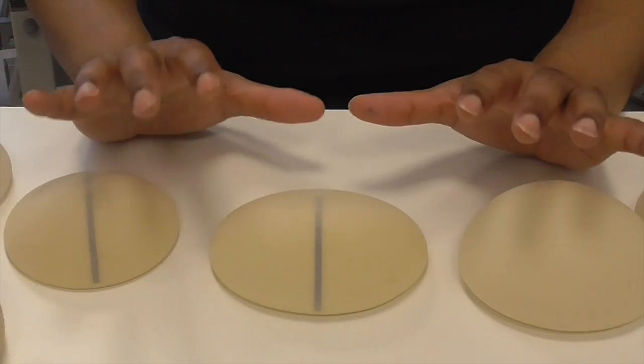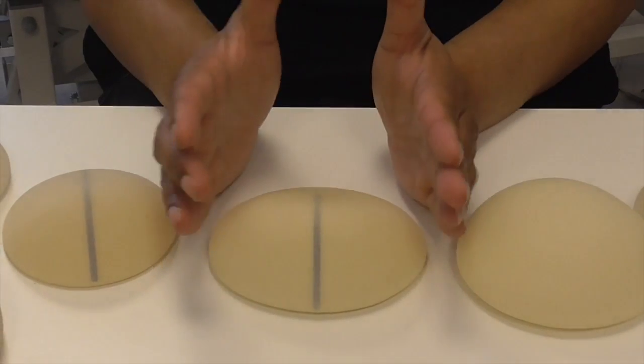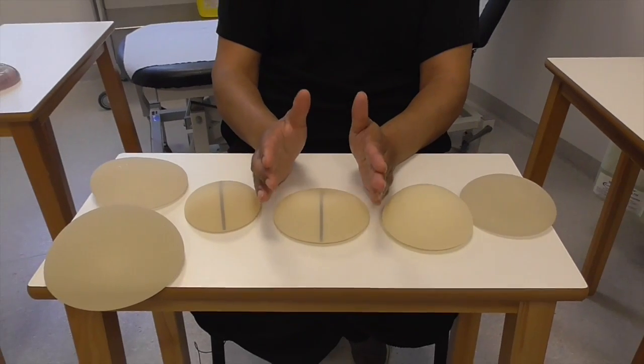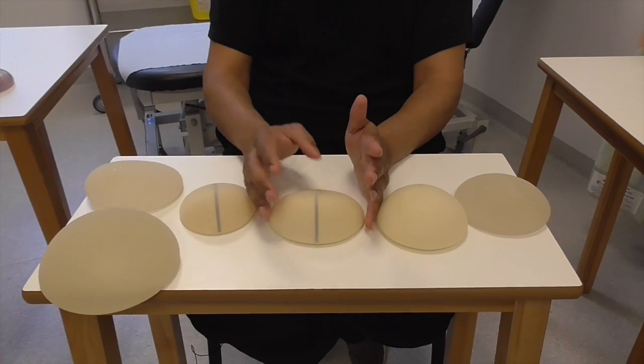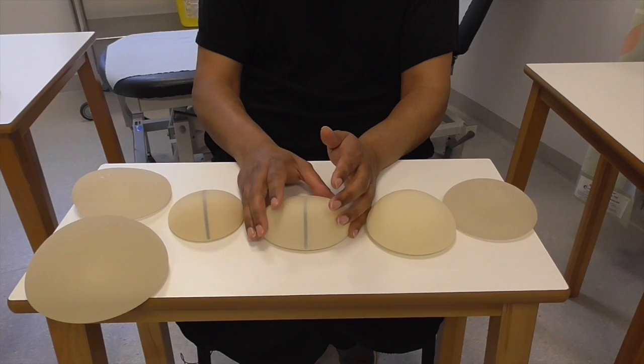In essence, there is a wide choice of implants that are available. One needs to assess the patient very carefully, determine what the aesthetic needs are, discuss with the patient the different types, and choose with the patient which is the best implant for them.